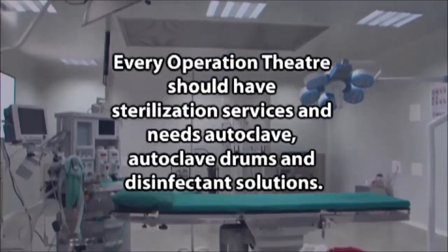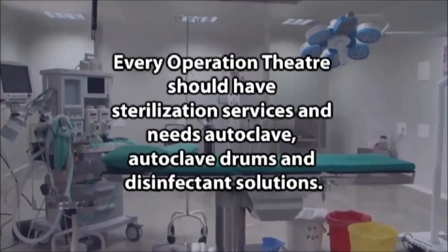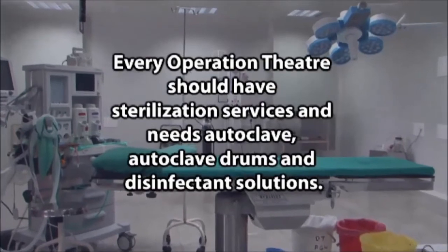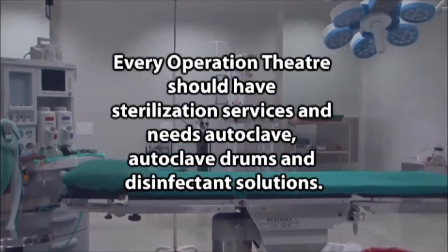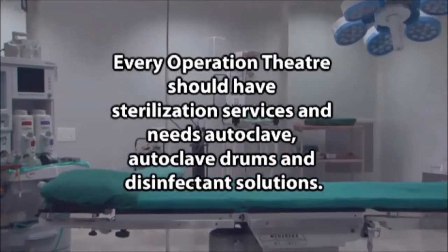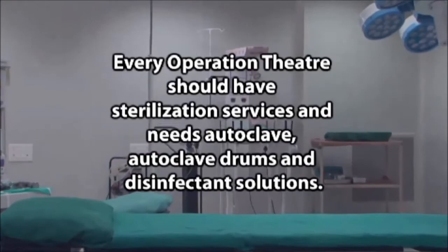Every operation theatre should have sterilization services and needs an autoclave, autoclave drums, and disinfectant solutions.